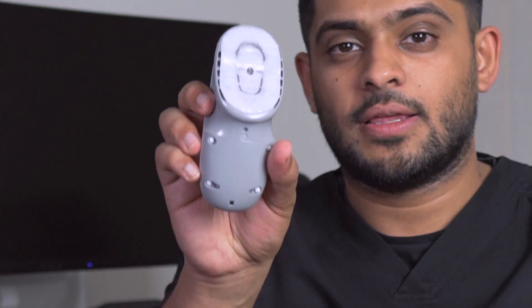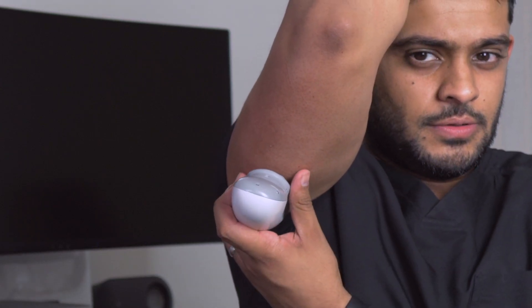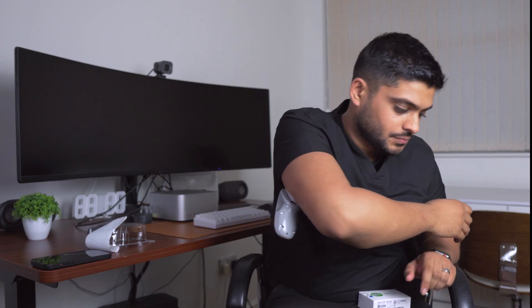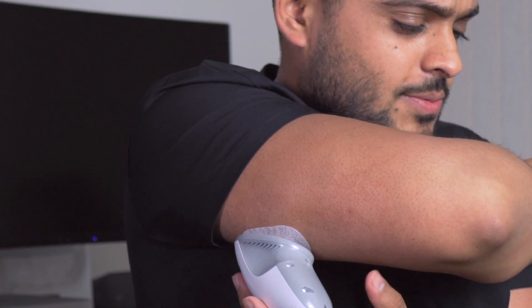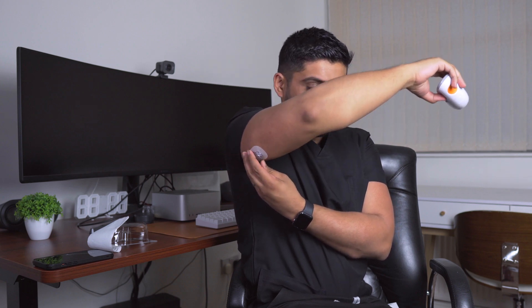You have to take that protective film off. I'm going to have a rough idea of where I want to install it. I've got a few lumps in certain areas, so I'm trying to avoid those. This should hang off just fine. I'll turn slightly to the side — I get a bit worried about this part. Oh, that was a funky sound, but it was pretty painless. So that is my sensor installed.